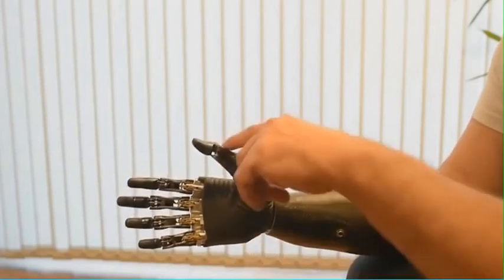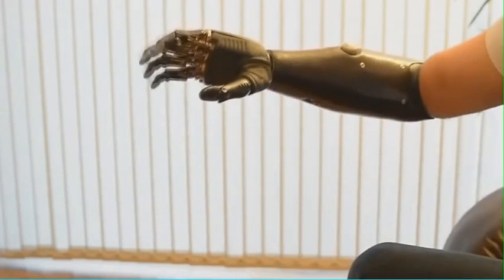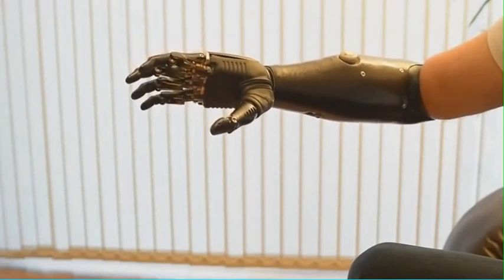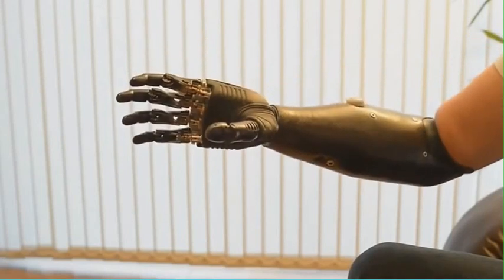We then move the thumb to this position and we can get a tripod grip for picking up and putting down small things. We can then change the grip again.